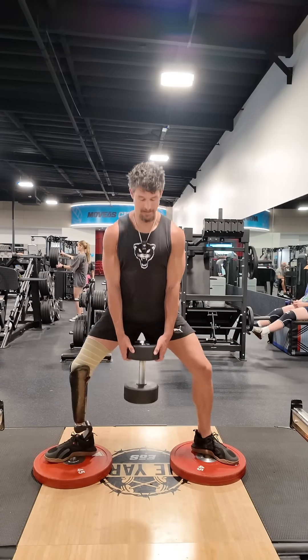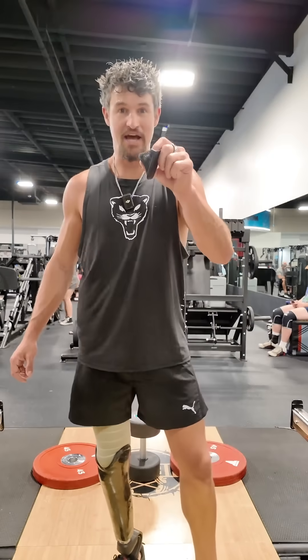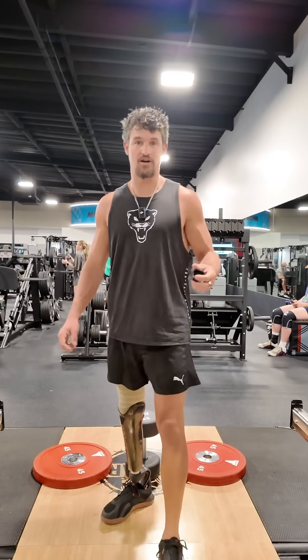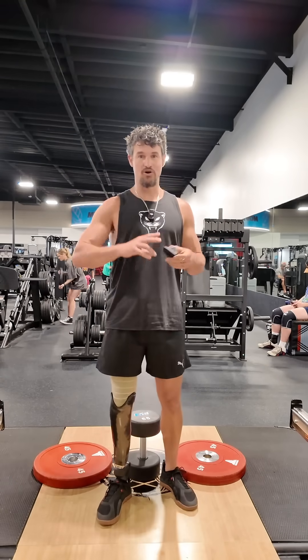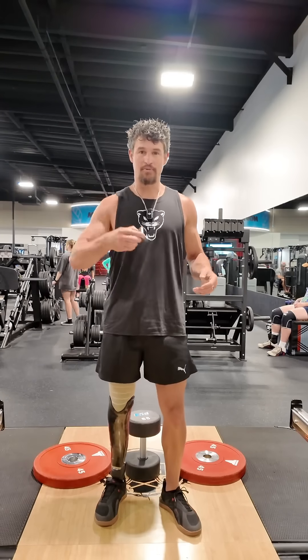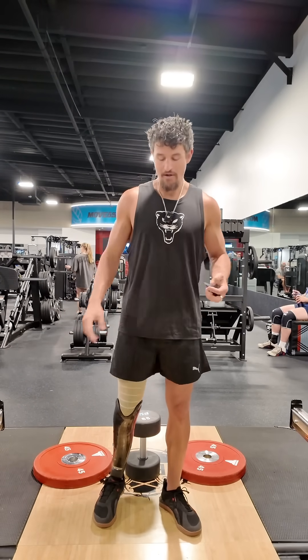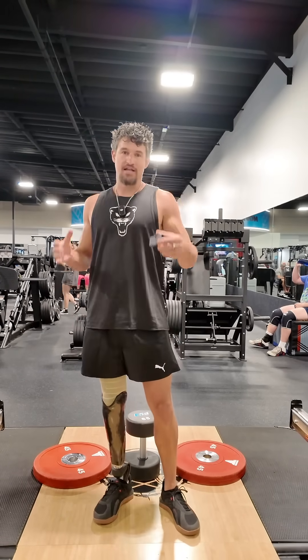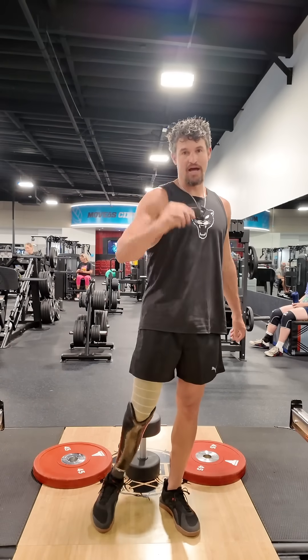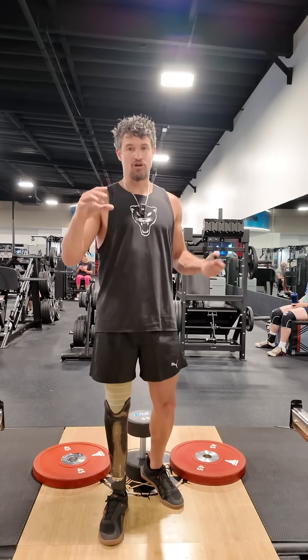So this is nice. Try it out — just remove the heel pad next time. You got the Pro Flex Terra on and you'll get a lot more range of motion, and you just toss this bad boy right in. It's like a little NASCAR pit stop, in and out, easy swap out — a little tire change. And then walking back to normal if you prefer with the heel pads in. It's nice because you can move these and instantly gain more compression and flexion.